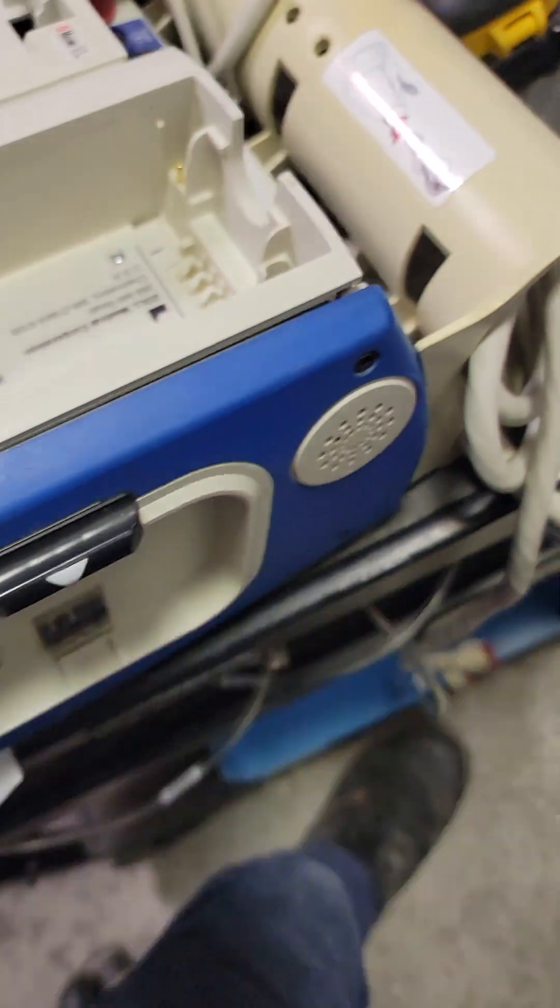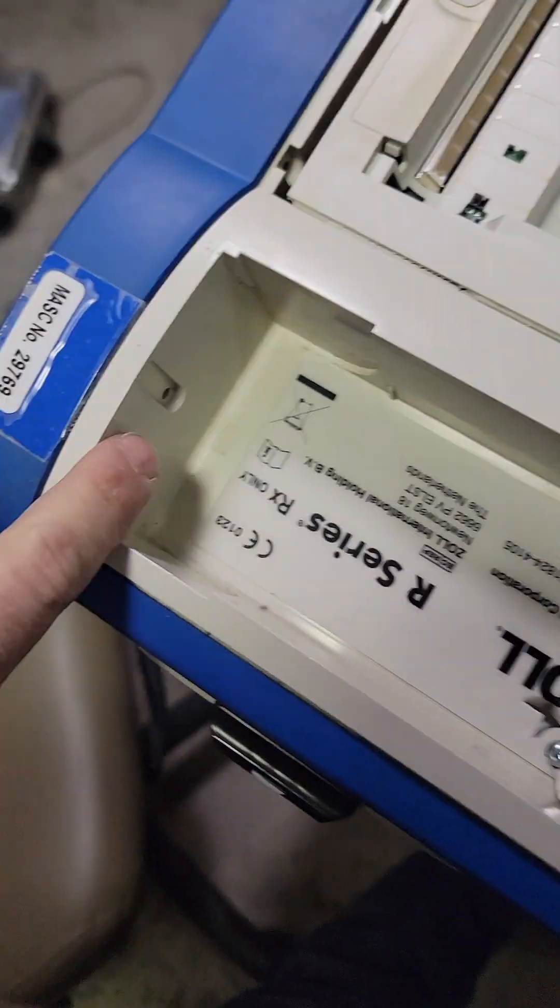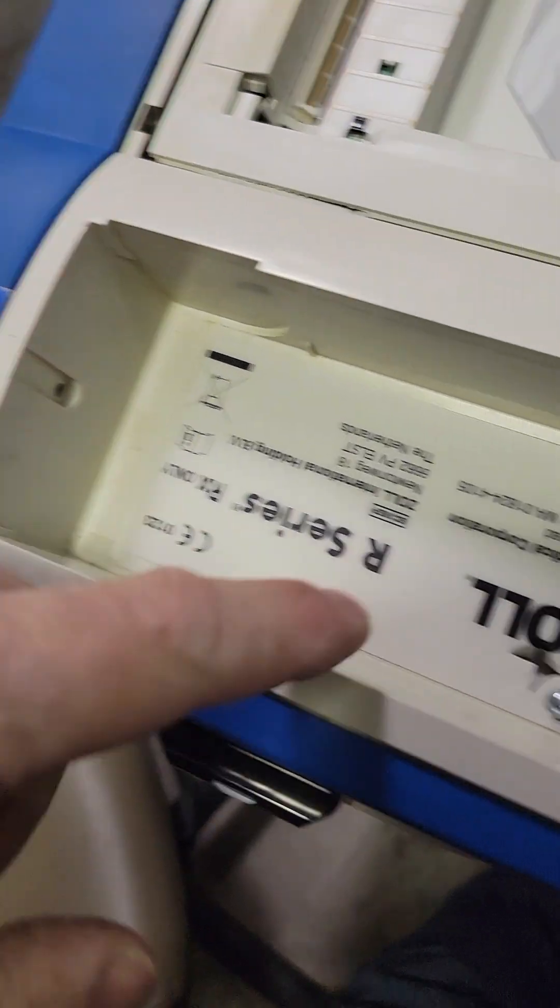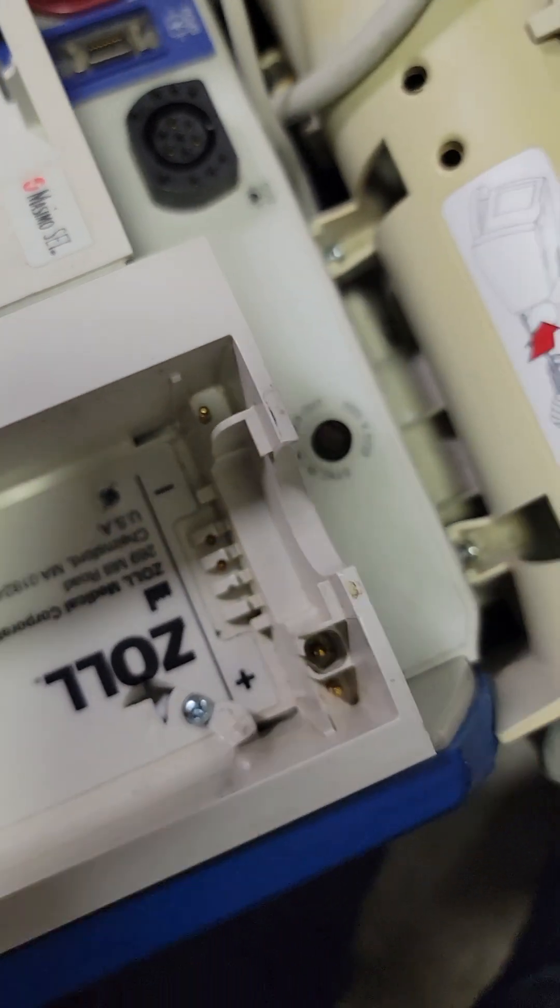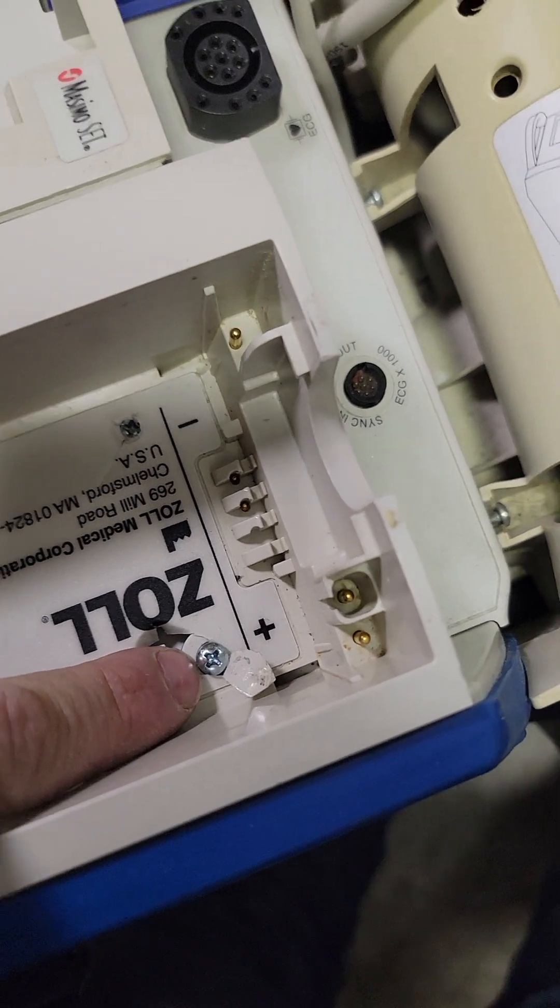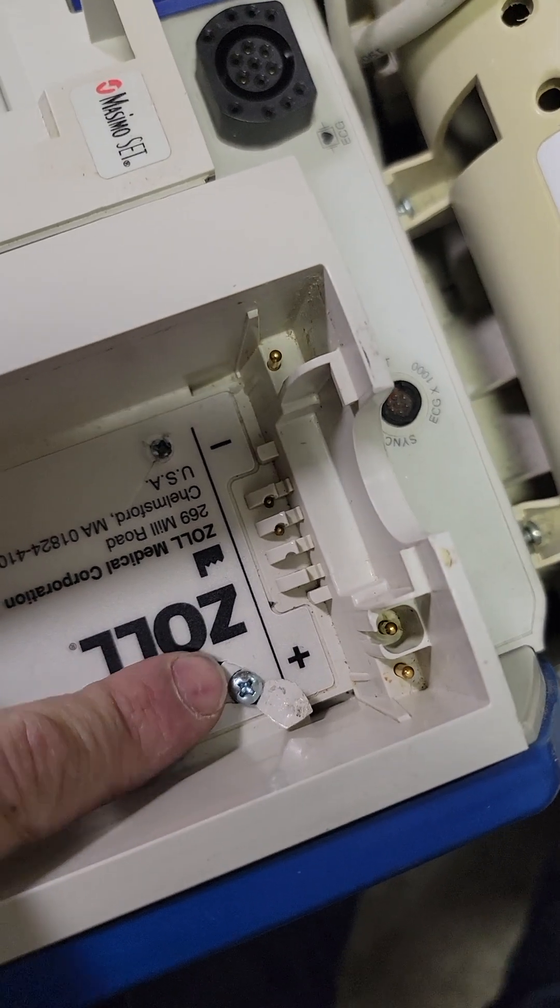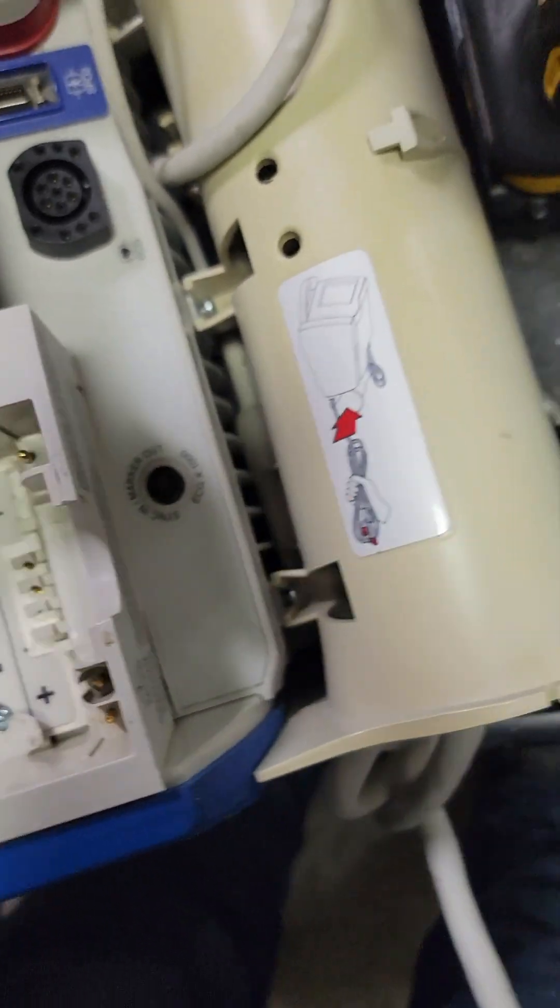You've got to remove this well. There's a screw right here, there's two screws here underneath the sticker. I don't want to replace this label so I just need little slits to get it out.